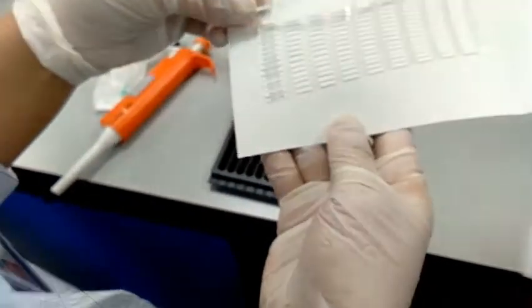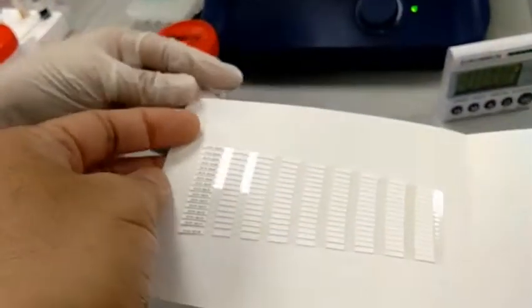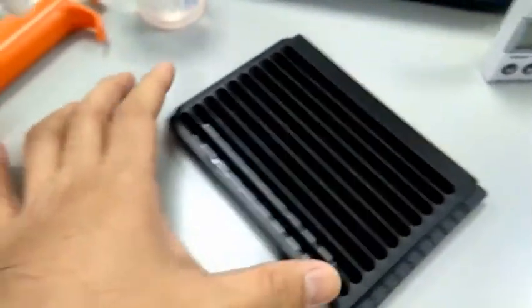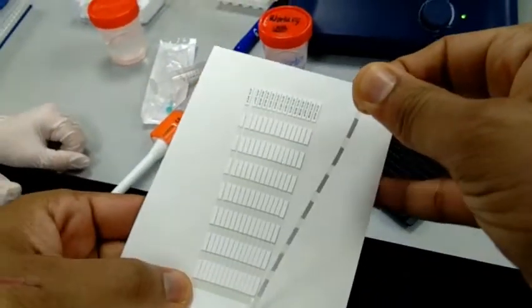So can you remove one strip? Where is the first strip? Better to start on list number 44. You can remove one. Just do not touch this part. Two for food and one for inhalation. This one is inhalation, right? Yeah. Do not touch this part.